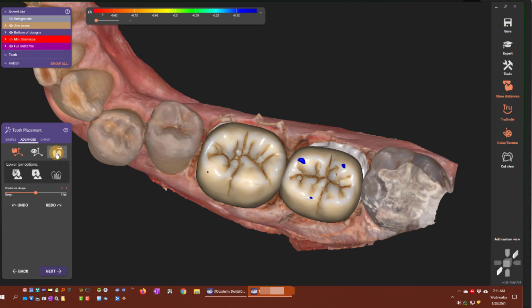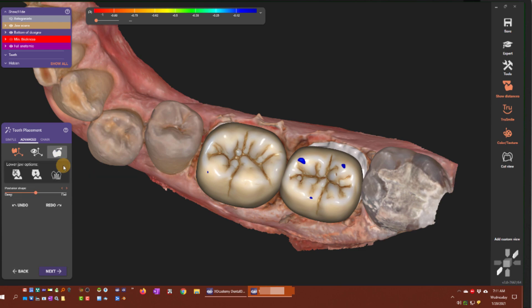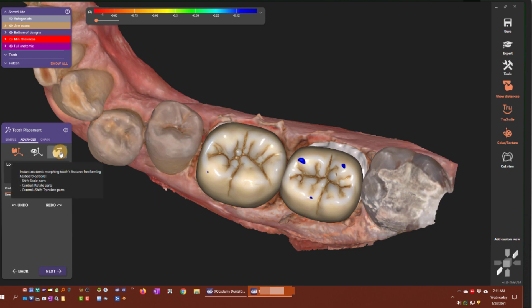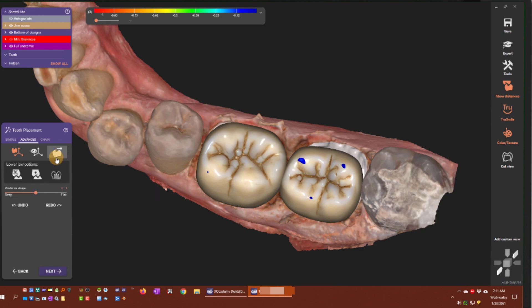The final tool is the instant anatomic morphing tooth features free-forming keyboard options. Shift is to scale parts, Control is to rotate the parts, and Shift plus Control is to translate — or bodily move — the parts. This is going to keep the margins of the tooth and allow you to move just the tooth parts, as opposed to moving the whole tooth.